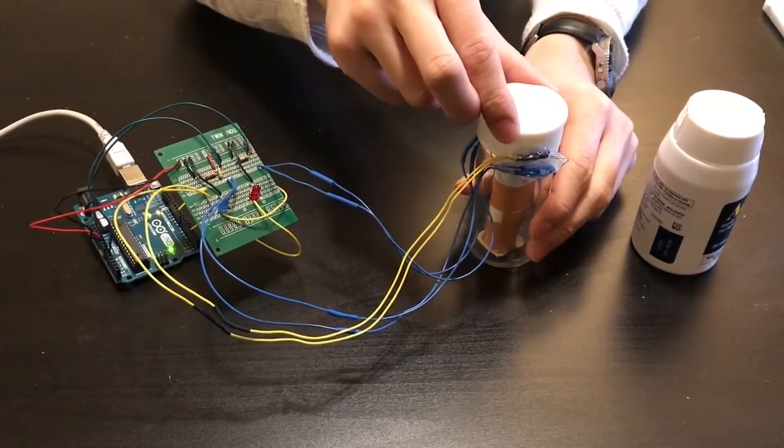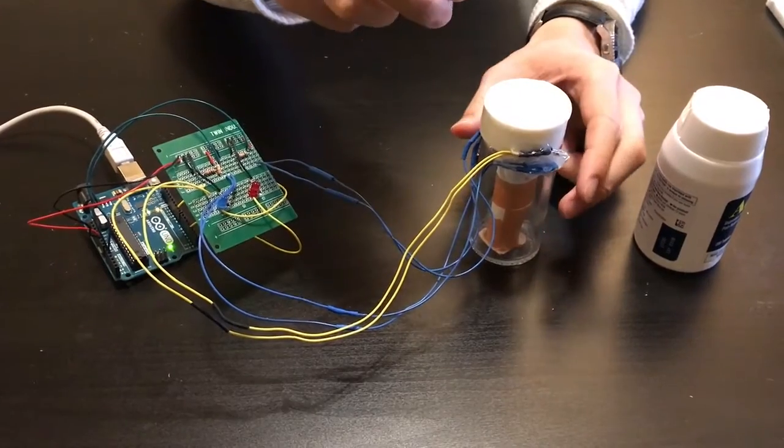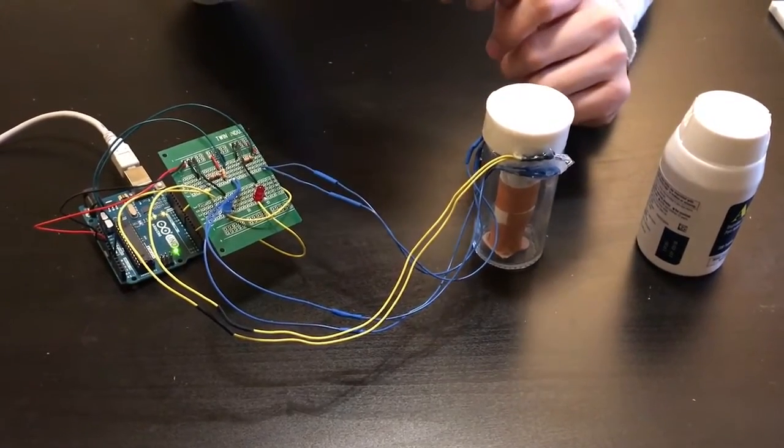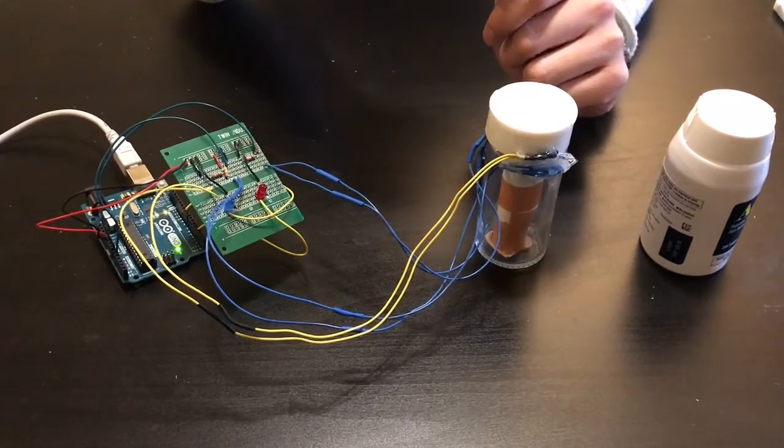Essentially what we wanted to do is make a pill bottle that keeps track if the patient has taken the pill for the day and how many pills they have left in their pill bottle.